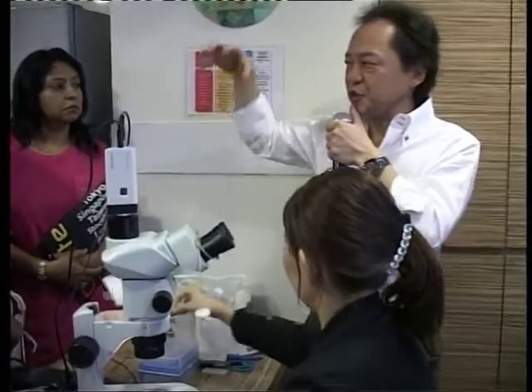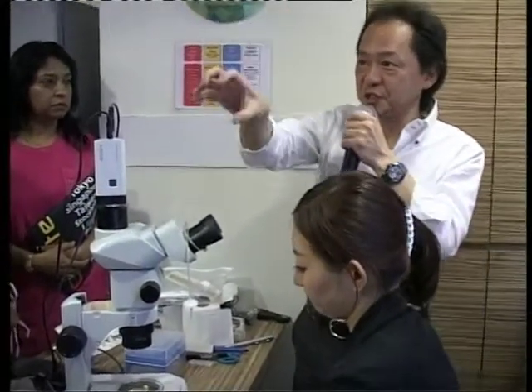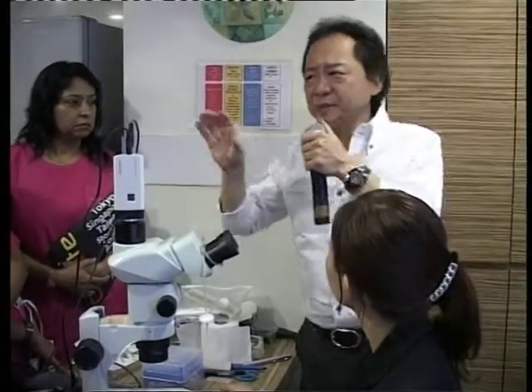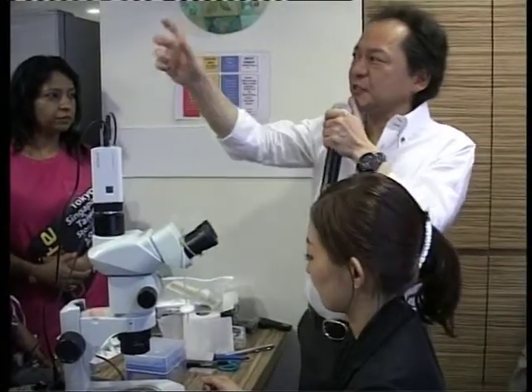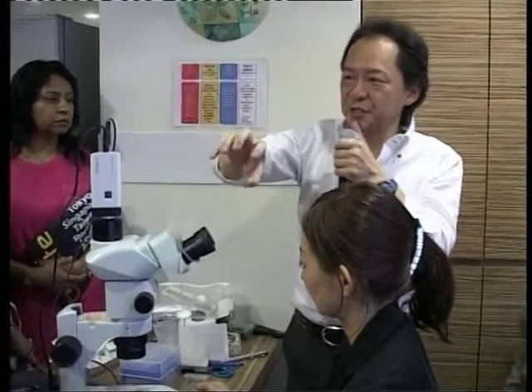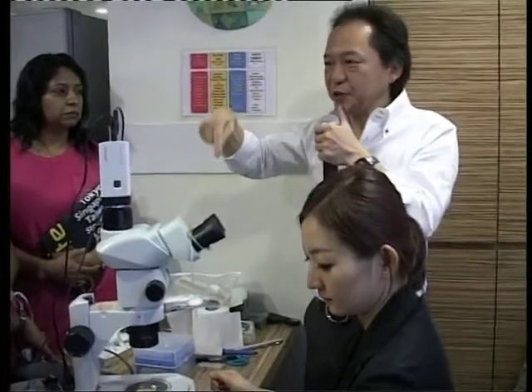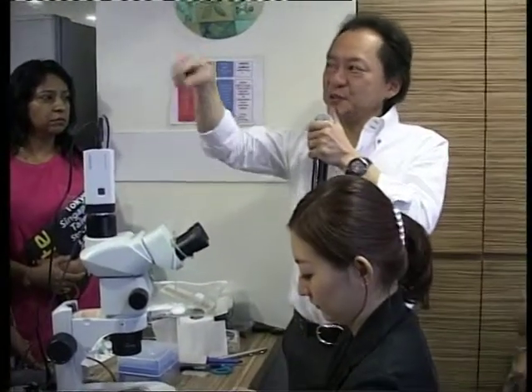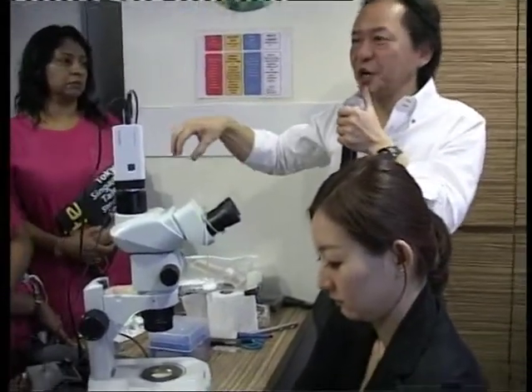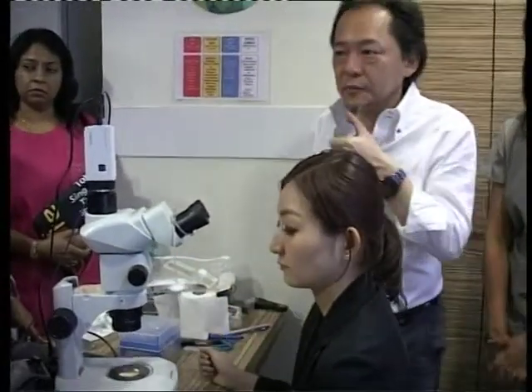If you have three oocytes, you make three drops. One drop contains only one oocyte. If there is enough volume of solution between oocytes in the pipette, you make one empty drop on the surface first using solution. Then, when the oocyte is at the top of the pipette, you make a small drop containing the oocyte. At one time, we can vitrify three oocytes in the same way.